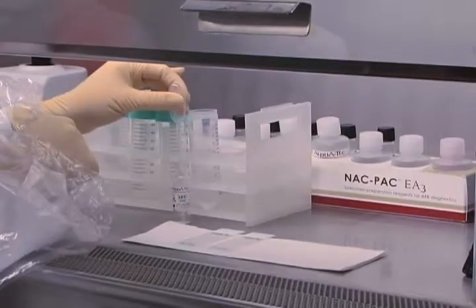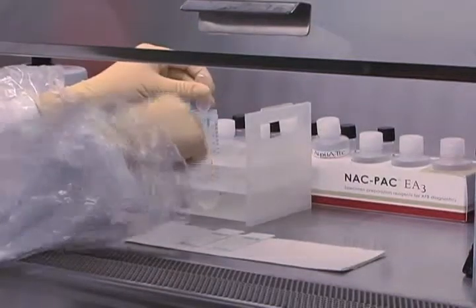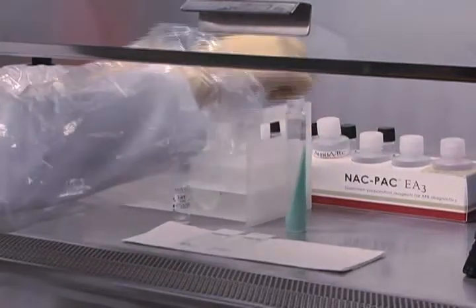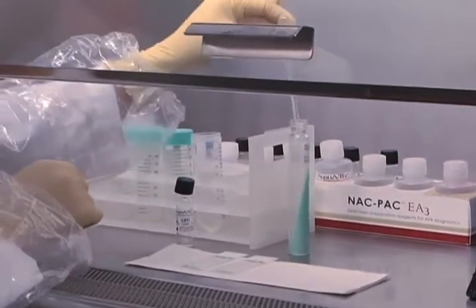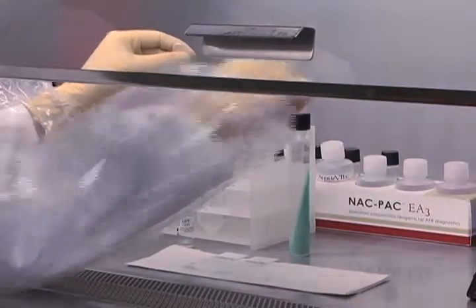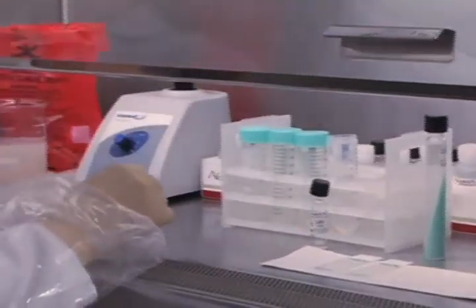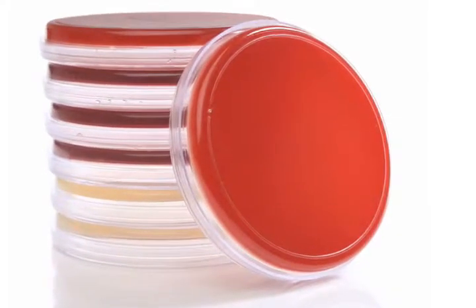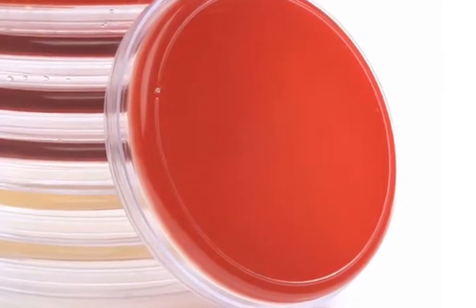Using the same pipette, add an additional 1 to 2 mL of the pellet resuspension buffer from the same vial and inoculate all other TB media and rapid detection equipment. This additional pellet resuspension buffer will ensure your specimen is within the ideal pH range for automated detection systems, traditional culture, and molecular diagnostics. Make sure you only add enough resuspension buffer to accommodate the diagnostic procedures you will be performing, ensuring the highest organism concentration. At this point, you should also inoculate a sterility plate so you can rapidly monitor any contamination that might be present.